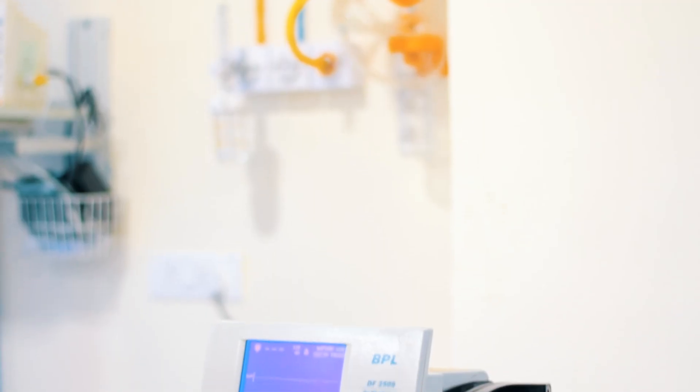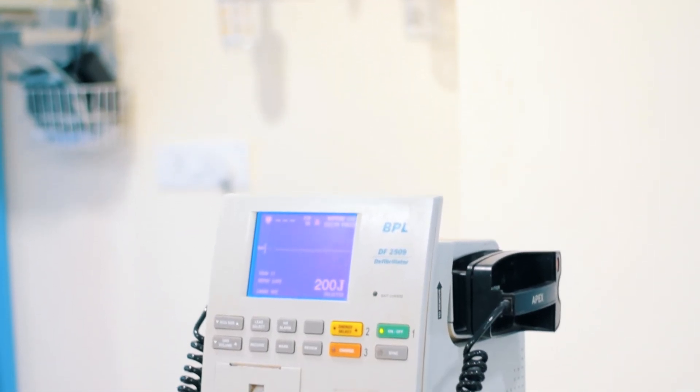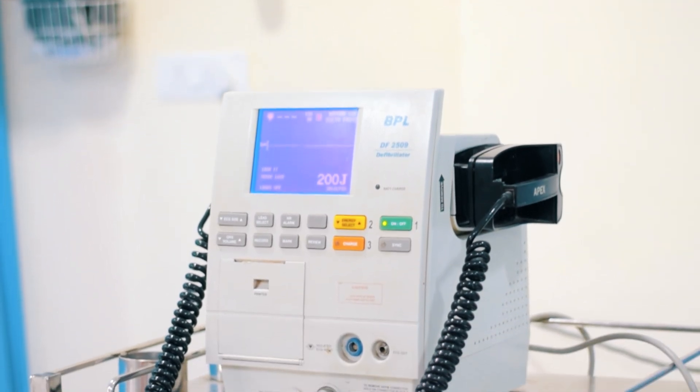Assalamualaikum and welcome back once again. If you're a healthcare worker, you might already know how to use an automated external defibrillator. In this video, we'll explain how to use a manual defibrillator.